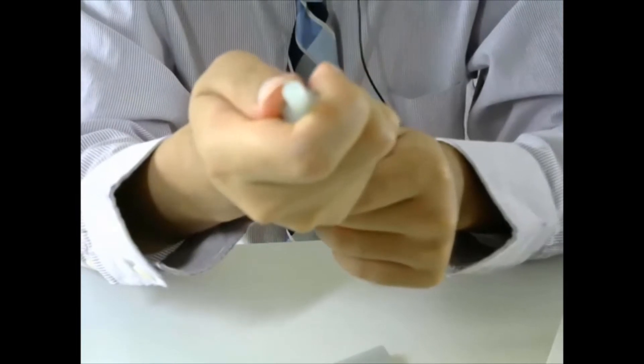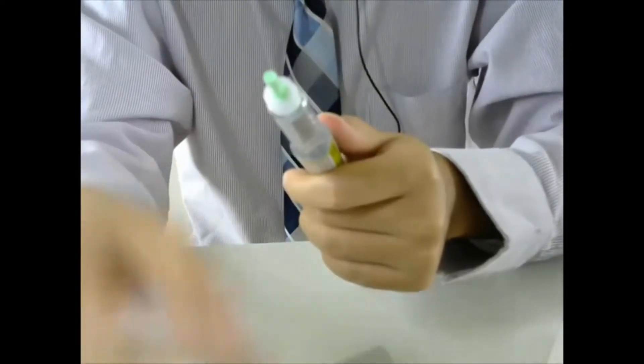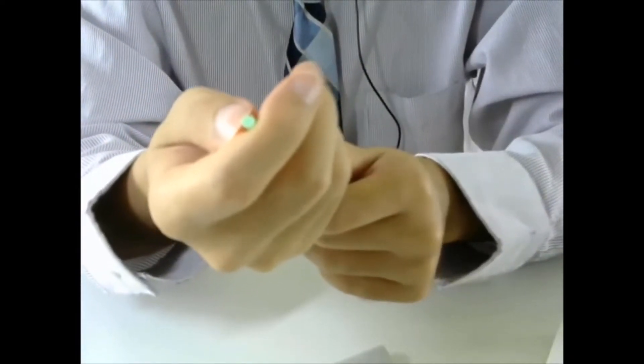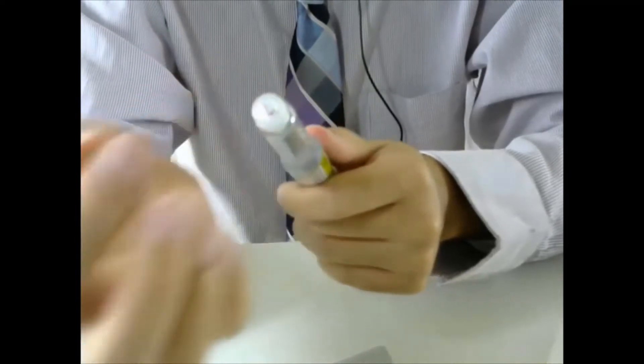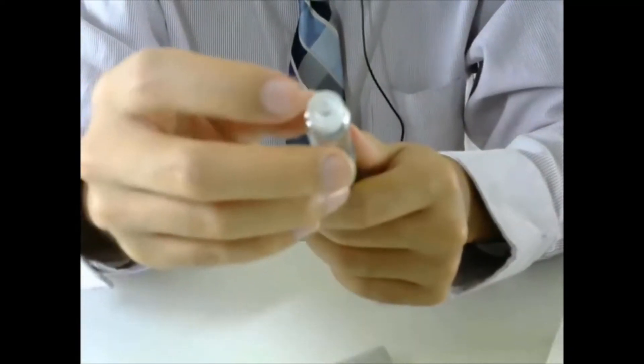Now we can remove the needle cap and the inner cap. Now you can see the needle.